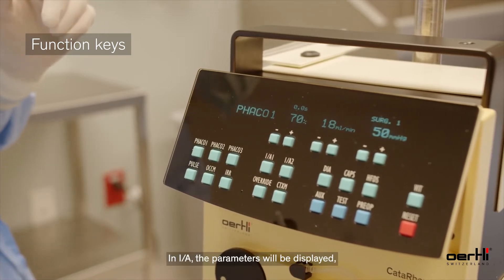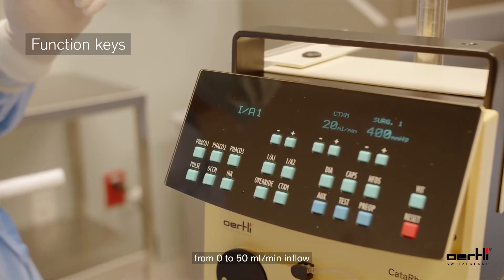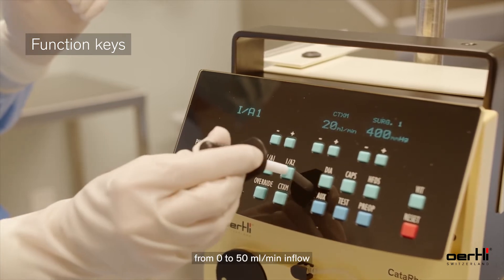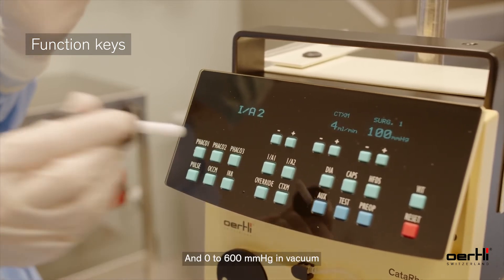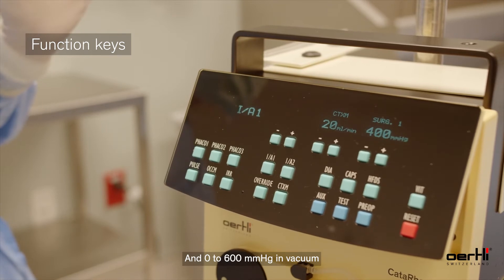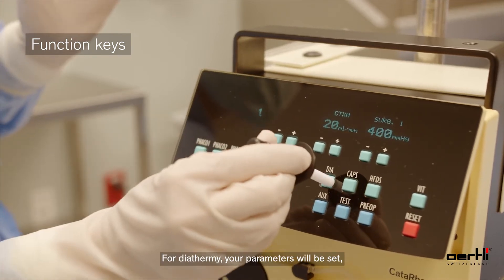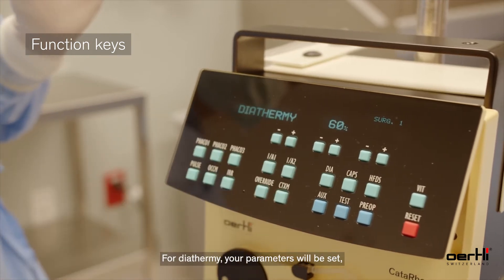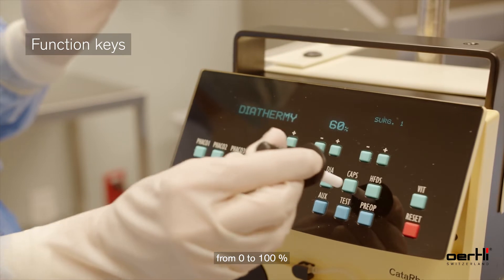In IA, the parameters will be displayed from 0 to 50 milliliters per minute in flow, and 0 to 600 millimeters of mercury in vacuum. For diathermy, your parameters will be set from 0 to 100 percent.